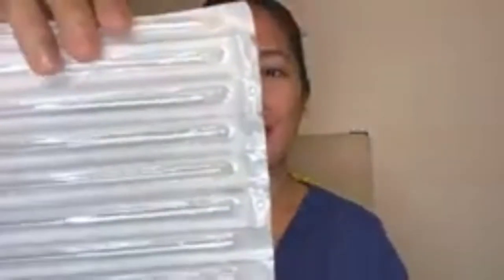First, this is the disposable swab. It looks like a normal cotton bud and it's much better than the original swabbing test kit. Unlike the original kit where they have to go from your mouth down to the throat and use the same swab on your nose — which is the very gross part — with this one, we just need to swab our nose and that's it.